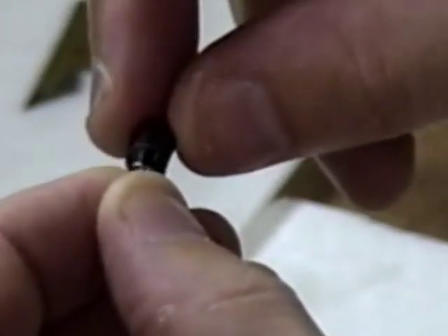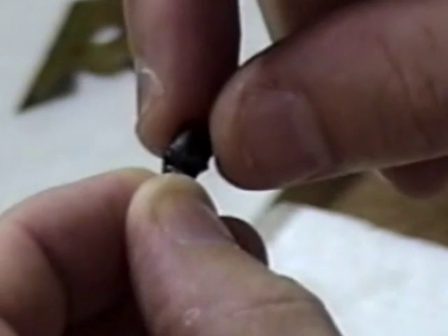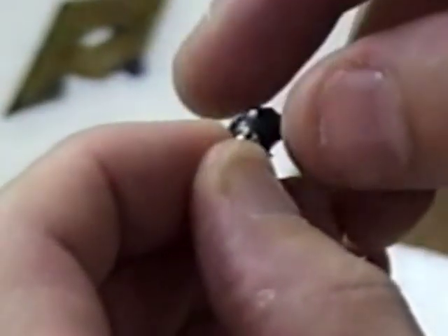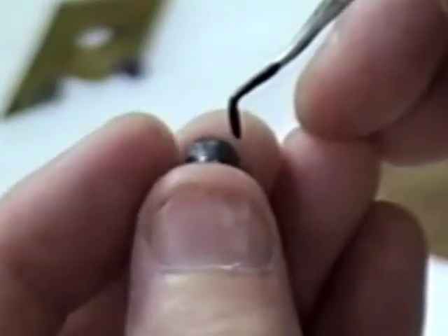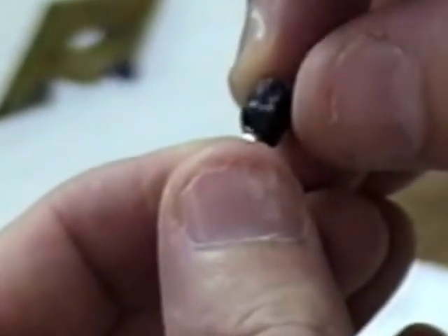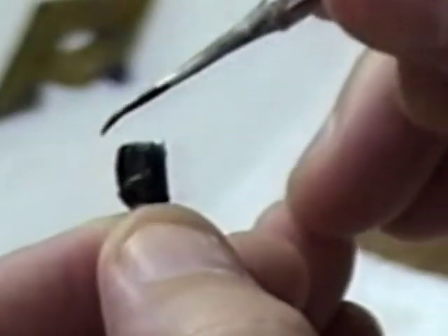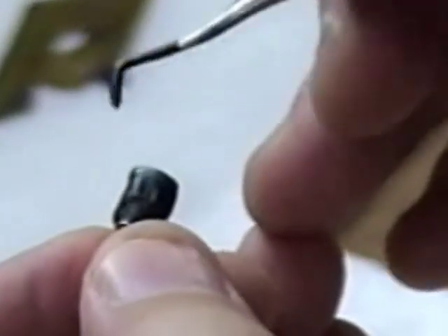So you just fill in the void there. And you want to make sure that you do not flow any wax over into the metal here — this needs to fit flush into your implant. So just fill that in. Also, make sure that you do not have any undercuts. See how that is an undercut there — I am going to carve that out. And fill in some of these little voids here that I couldn't really get to when it was on the model.